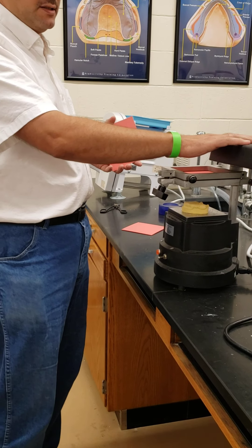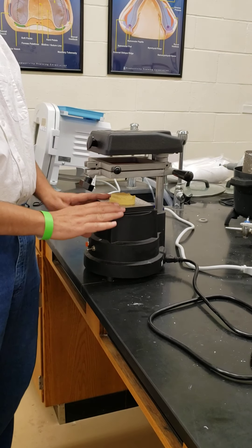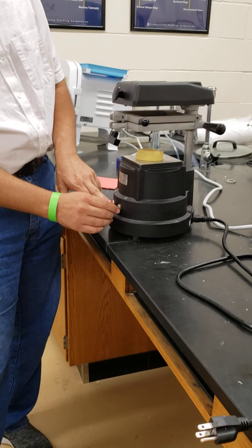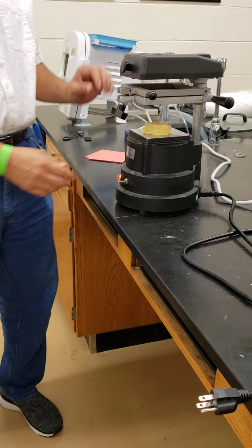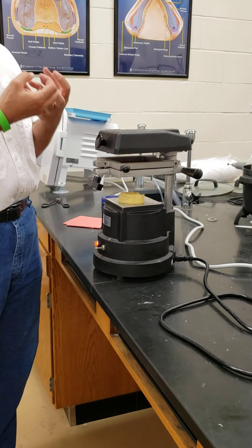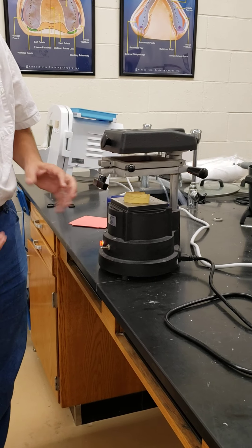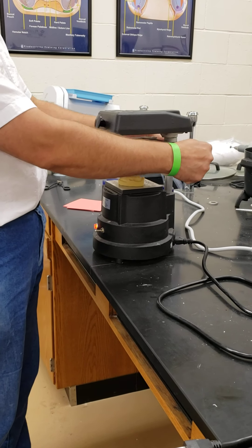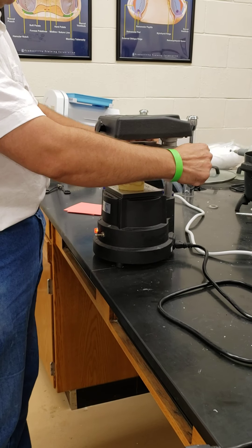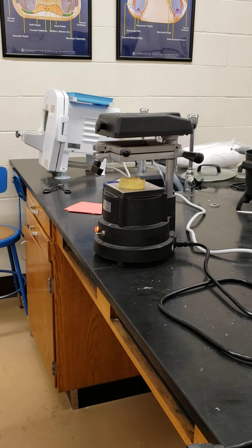All of this is what this machine can do. There's a source of heat here and a suction here — just be careful, it's hot. The first thing we have to do is turn the heat on. The heater will heat the sheet and the sheet will start to melt. Don't wait for it to melt all the way — when it becomes soft, loosen this and get it all the way down, and at the same time pull the suction. It's starting to melt the sheet.